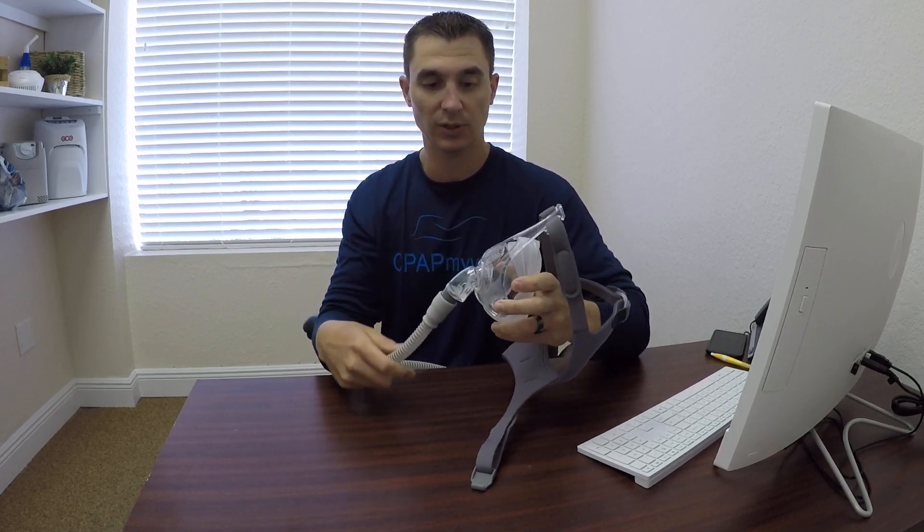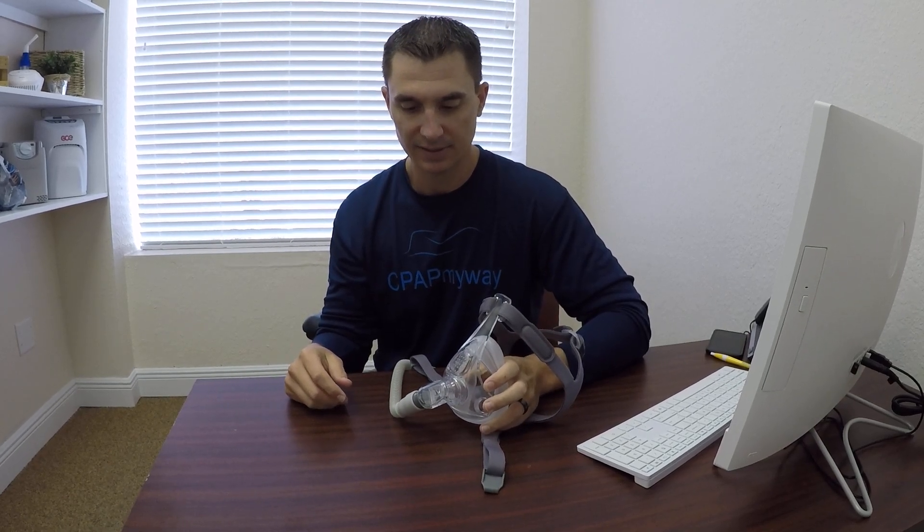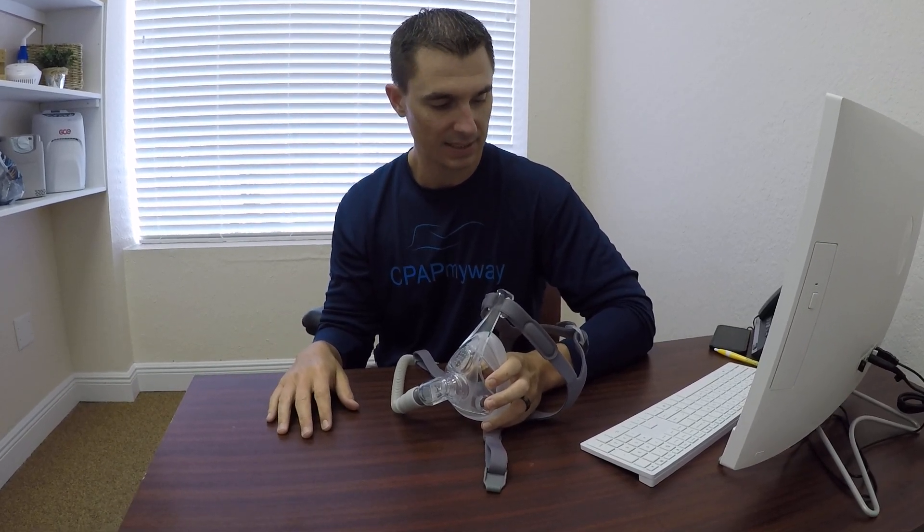It does swivel as you move, so it's very easy to move around within bed, and overall it's a really wonderful mask. Thanks for checking it out.